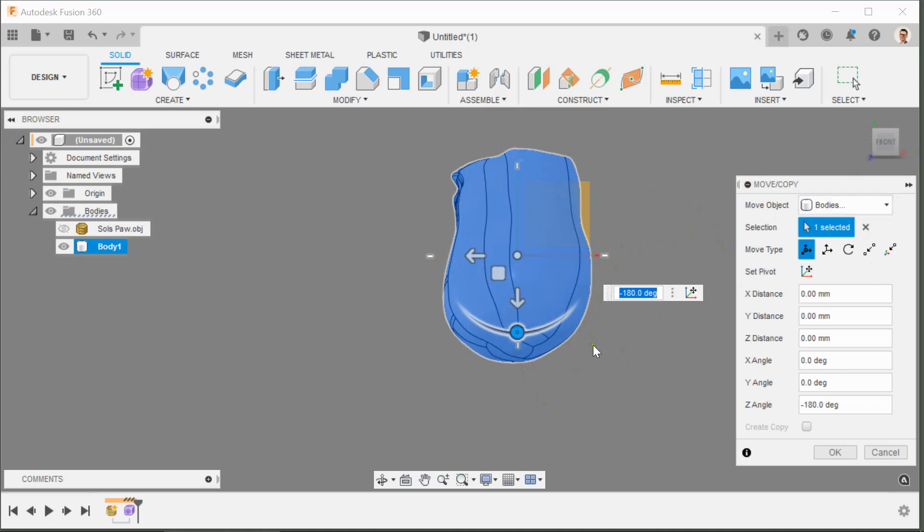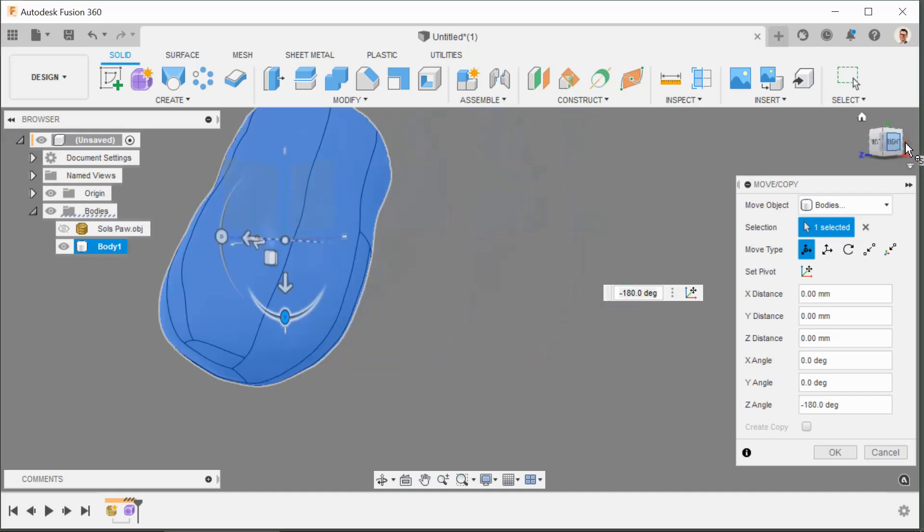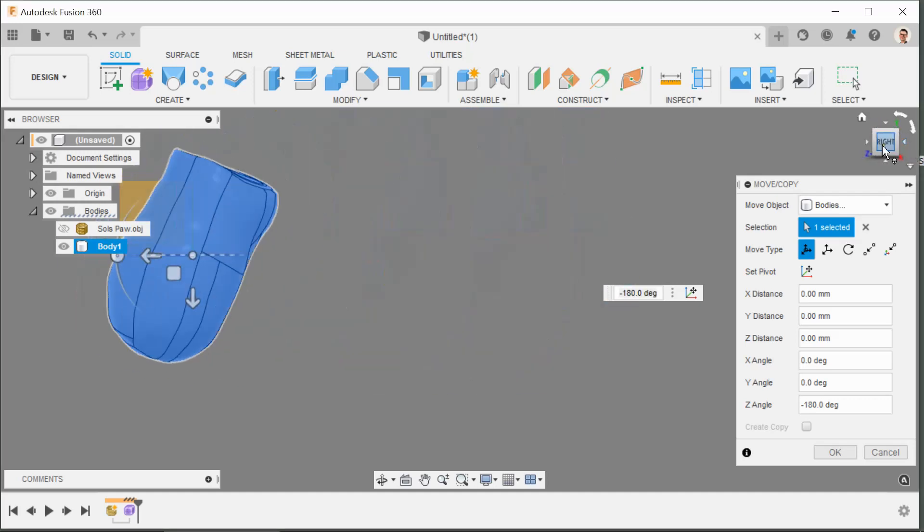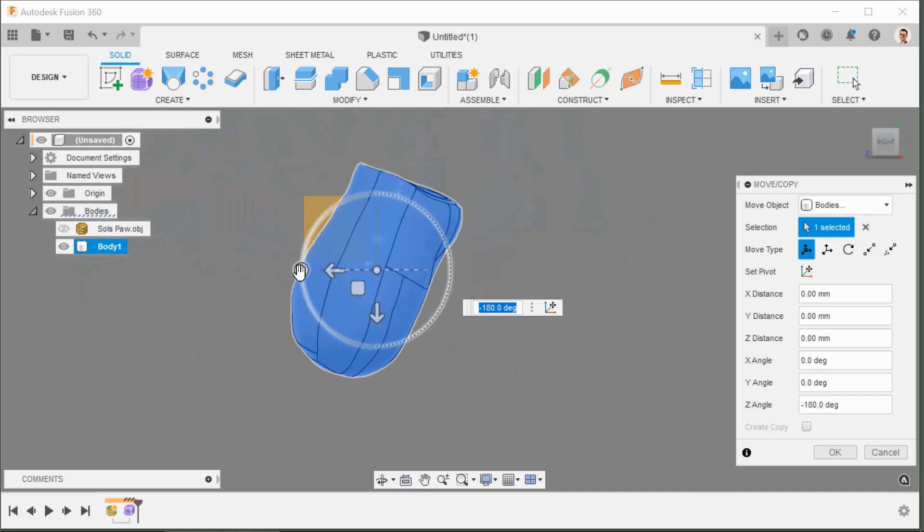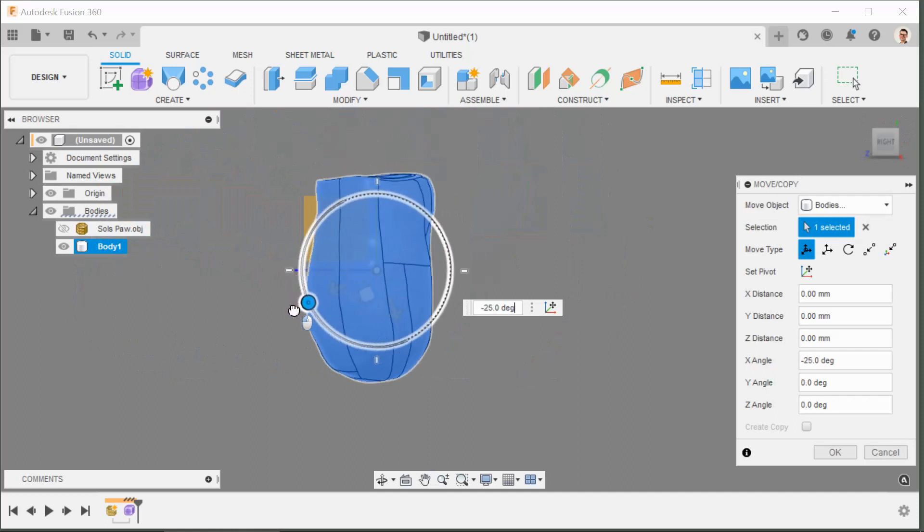Okay, so there's the front. Now we're nearly right. First of all just need to do a 180 flip that way. And then I won't maneuver in any other way, so there are plenty of ways of using the keyboard or the mouse to maneuver, however I'm only going to use the NaviCube. So I'll click on here, just click on that little arrow there. That should now turn it to the side so I can see the paw is facing up in the air. I need it to be going down.